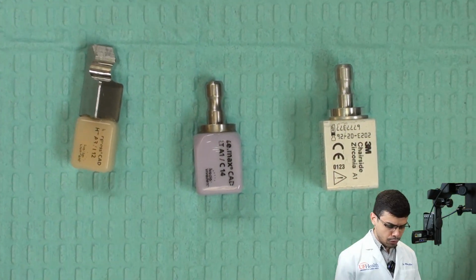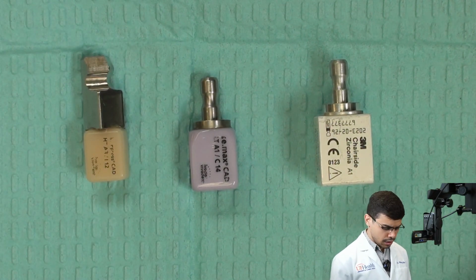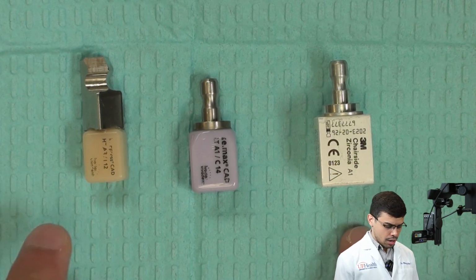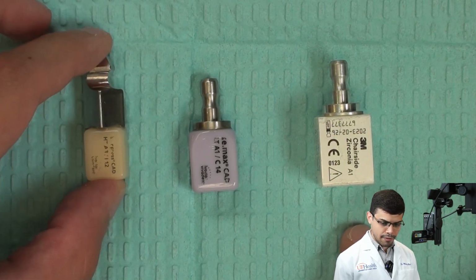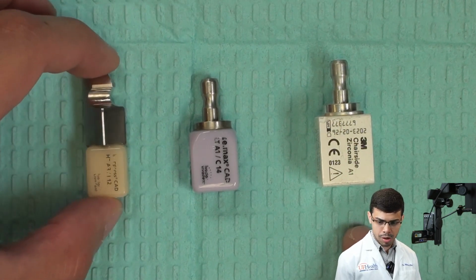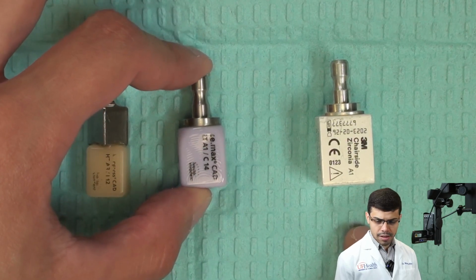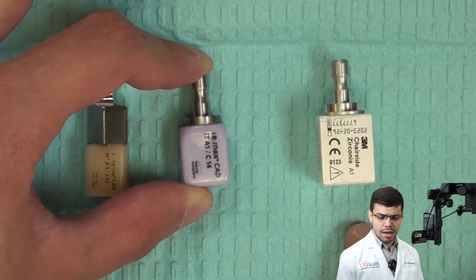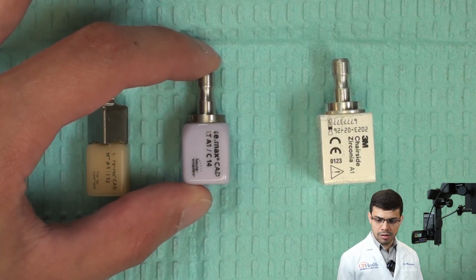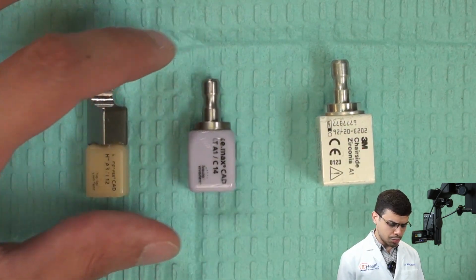So if you take a look at the decision tree and the table that I provided to you, you're gonna see that we have some materials that require different ways to be treated, all right? So for example, this one on the left, this is Empress CAD, this is a leucite reinforced ceramic. So this is a glass-based ceramic, and you know all the differences among those. This is an e.max CAD, which is a lithium disilicate glass ceramic, okay? And this one is very popularly used for many things, and you're gonna see also in the spreadsheet.